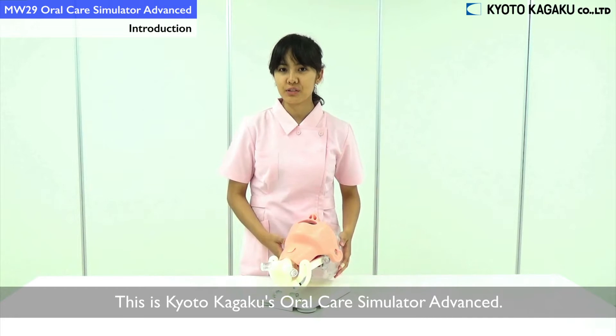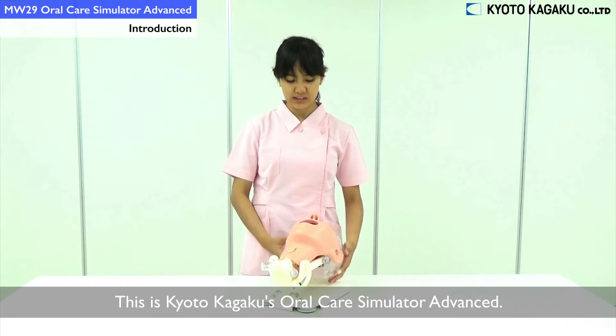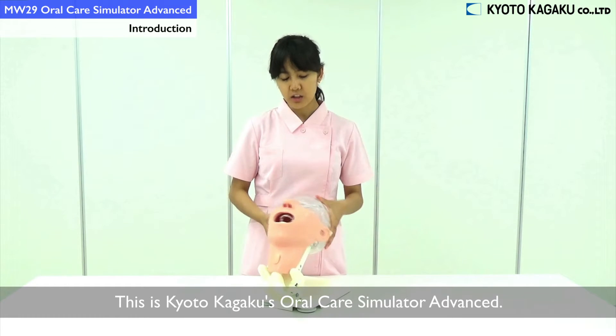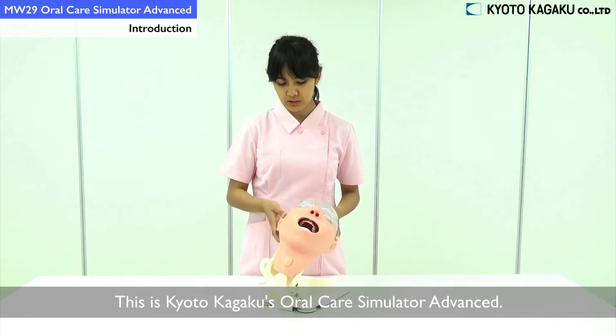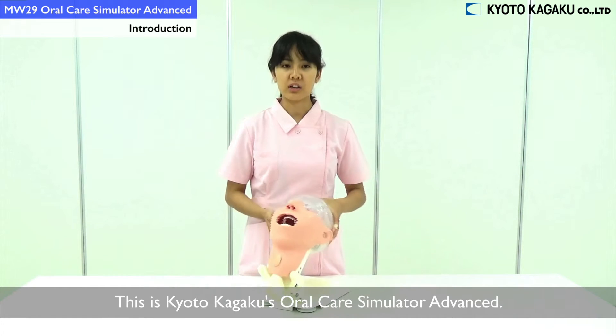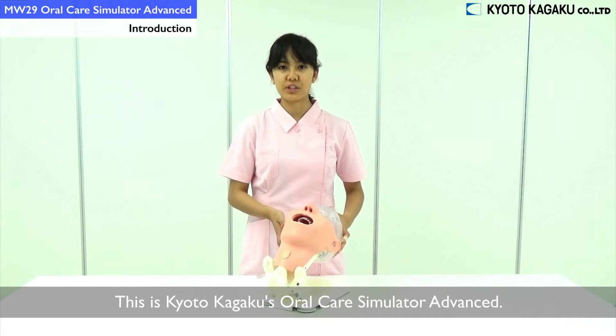Today I will introduce you to the Oral Care Model Advance. There are a lot of settings you could do with this model, so there are a lot of trainings you could also do with this model.